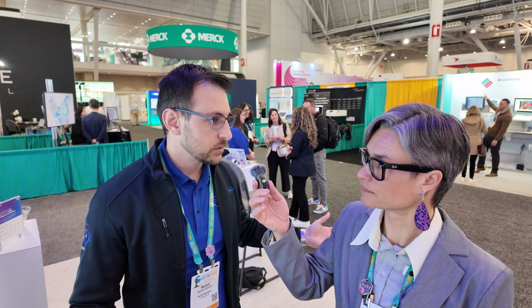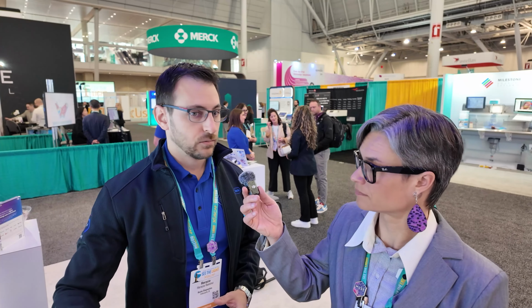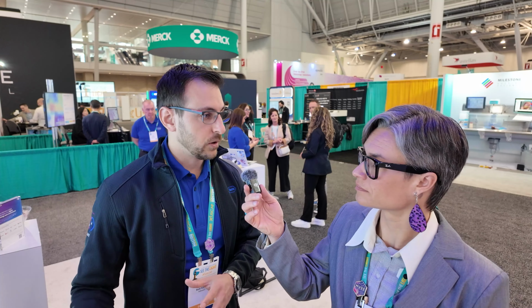Because we have two scanners, a smaller capacity, the DP200, and larger capacity, any combination of those will work. You can have a centralized location with multiple DP600s, for example, and have pathologists anywhere in the country. Or you may have a central location, but also satellite locations that wouldn't need a larger scanner like this, and they could use the DP200 and connect it to the same network, and the whole system would be integrated. So remote viewing, tumor boards, education, you name it. The scanners are very versatile.